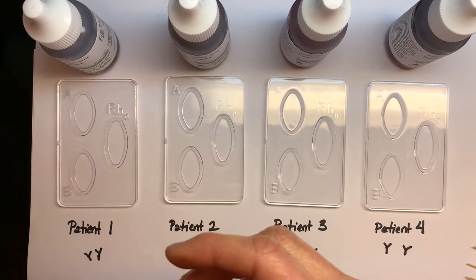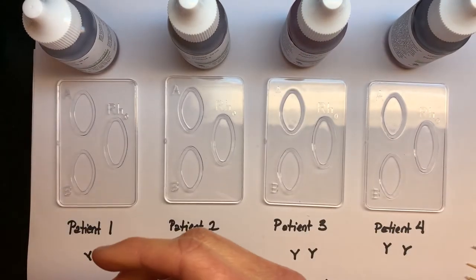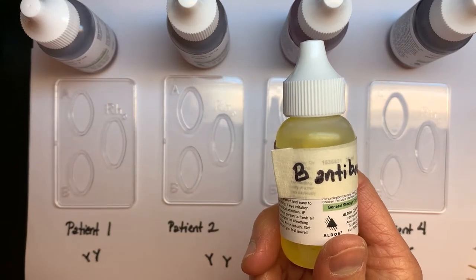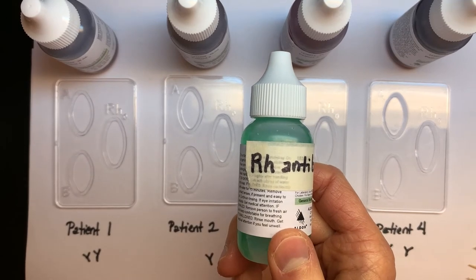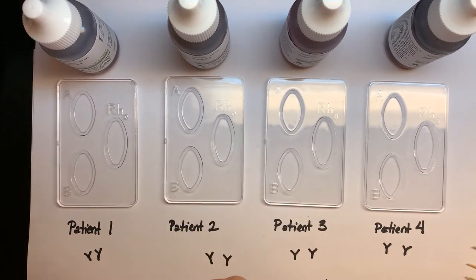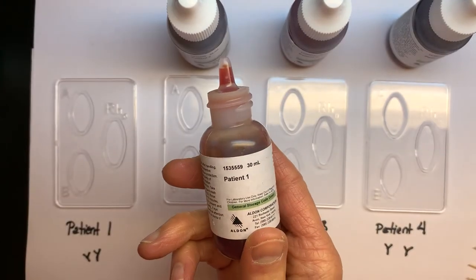So we have an A antibody that will attack any red blood cells that have an A antigen, B antibodies that will attack any red blood cell that has a B antigen on its surface, and RH antibodies that will attack any red blood cell that has the RH antigen on its surface, meaning it's positive for RH.